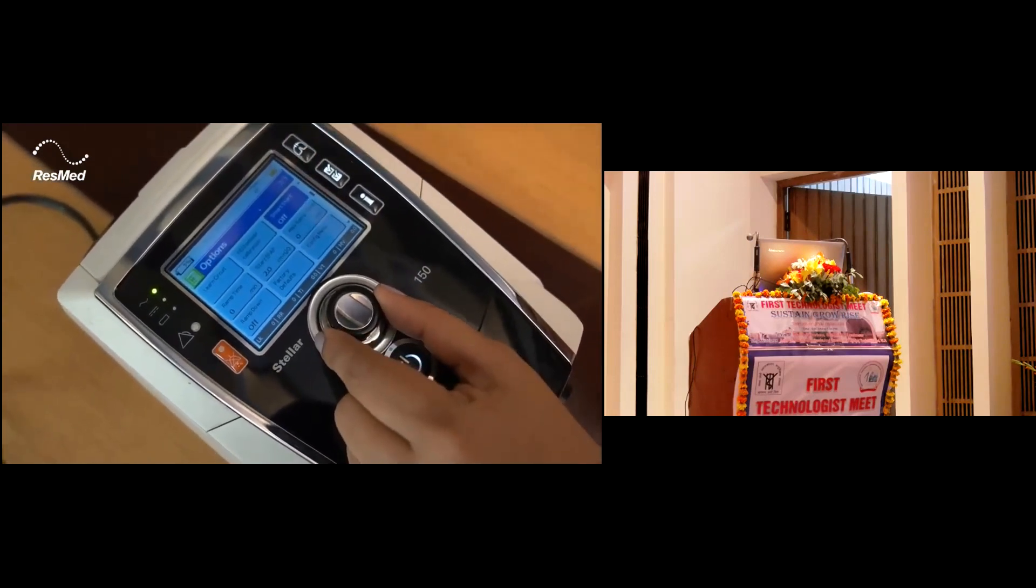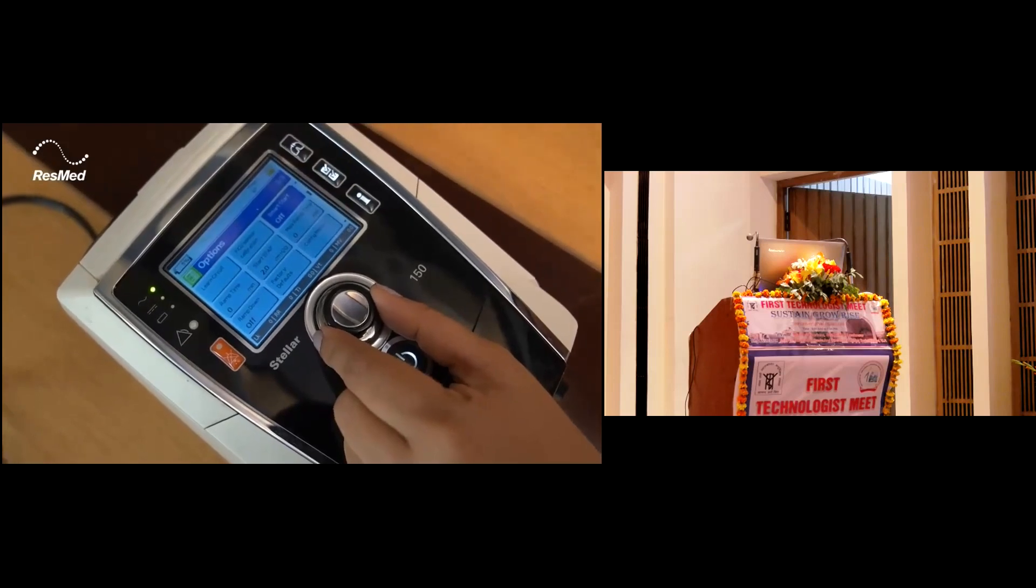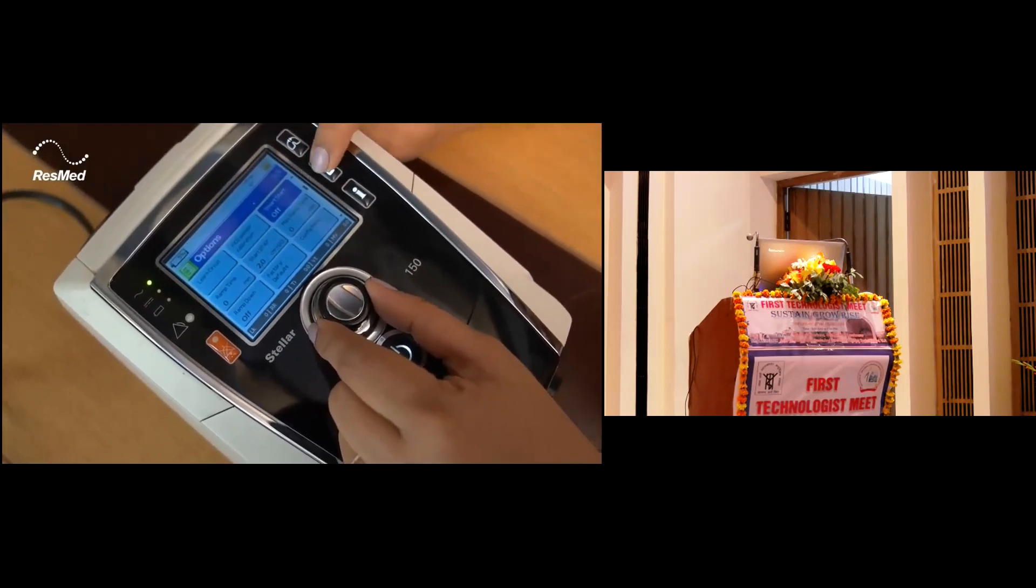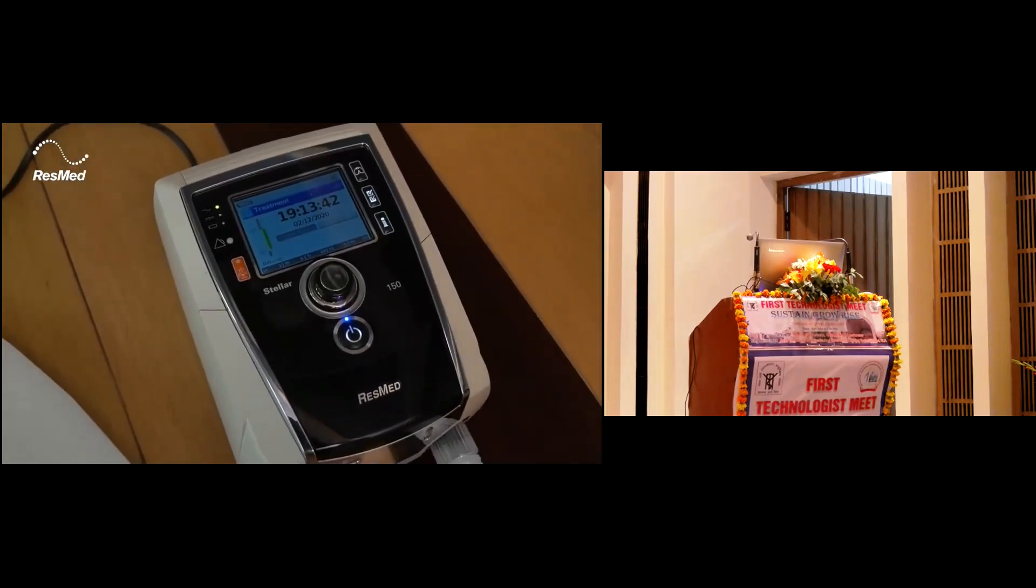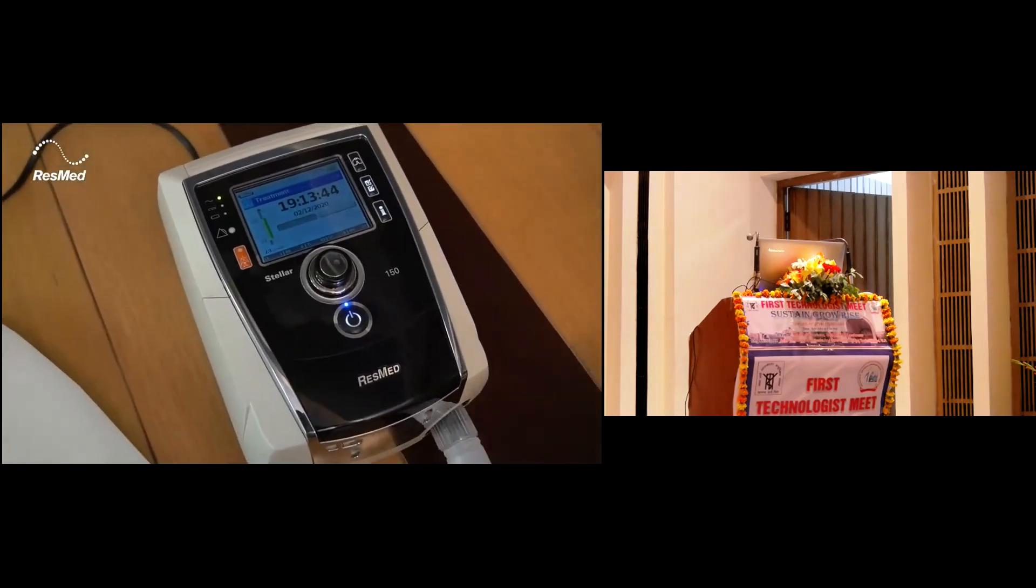Other settings like ramp time, start EPAP, and other settings can be set under options. This was about the clinical settings. Now that we have done the settings, I will now start the ventilation with the test lung.